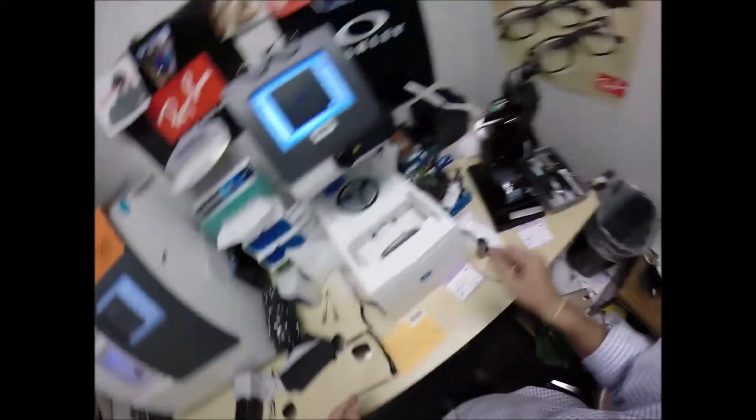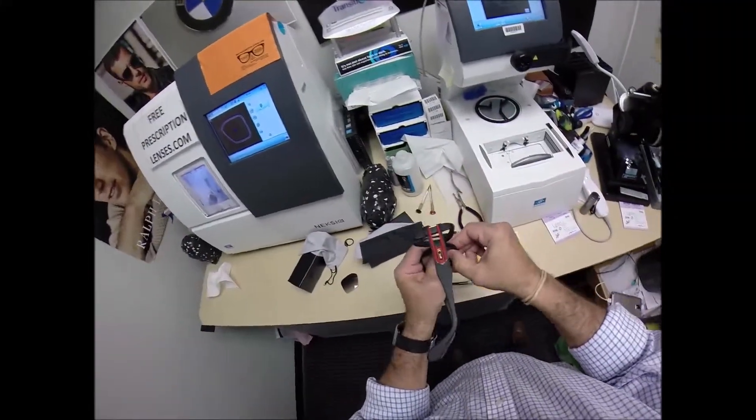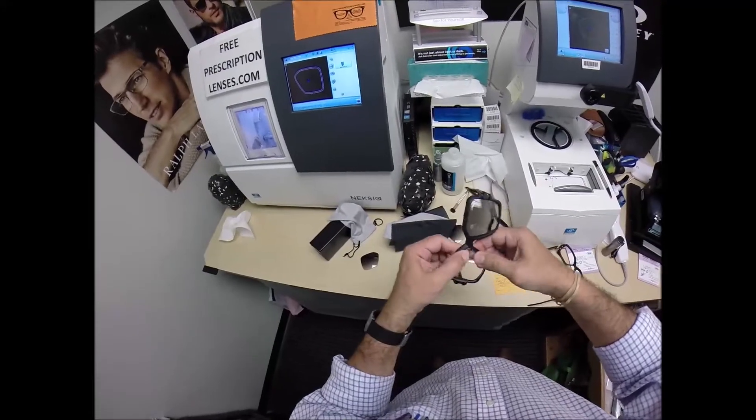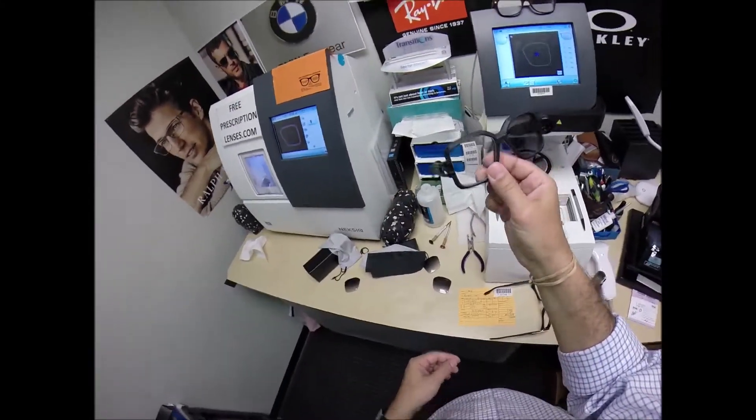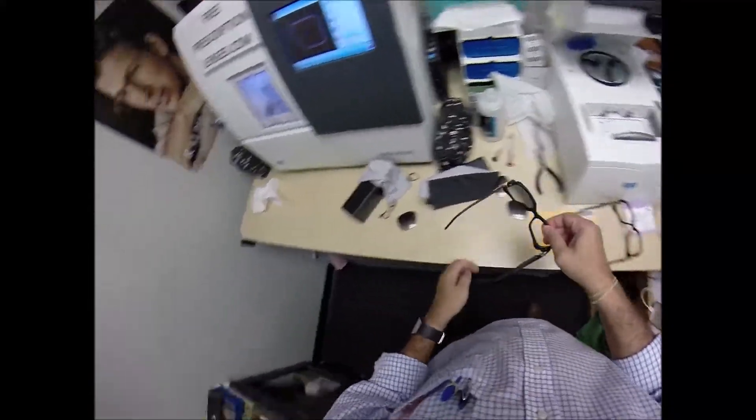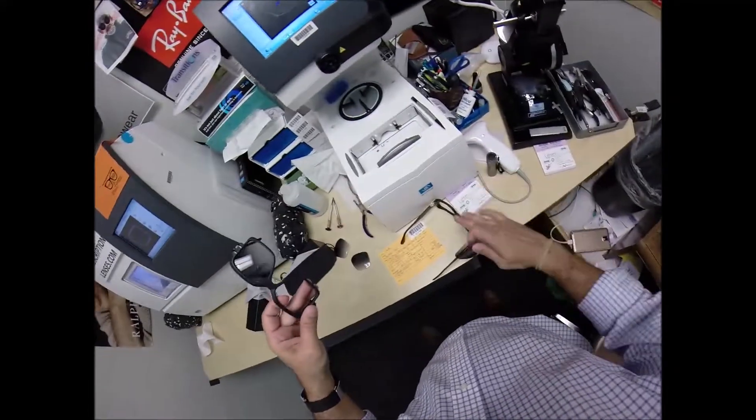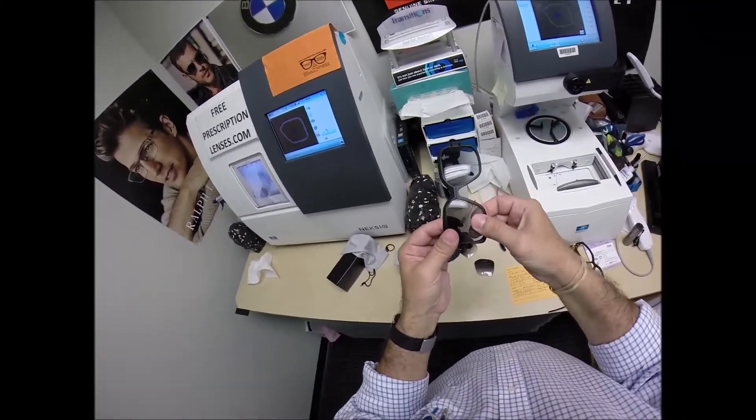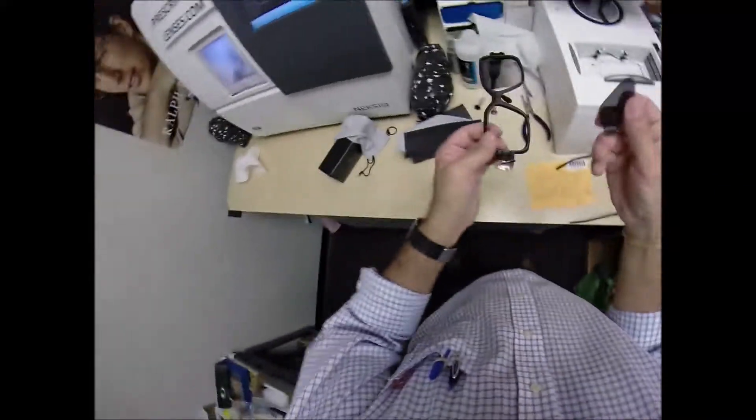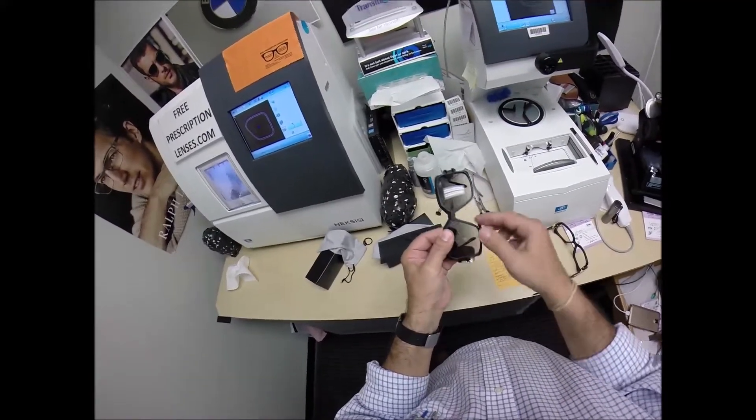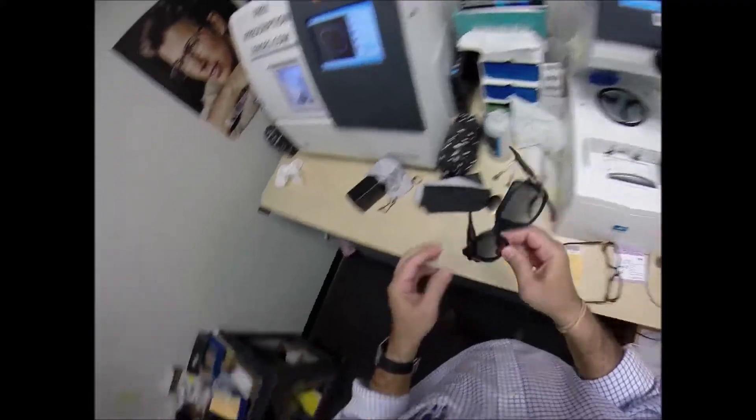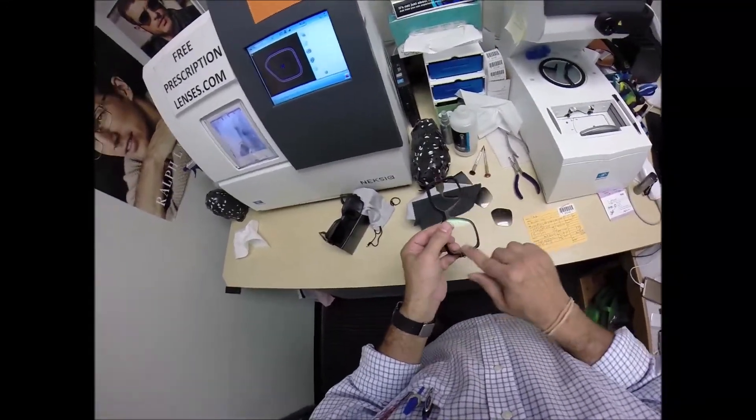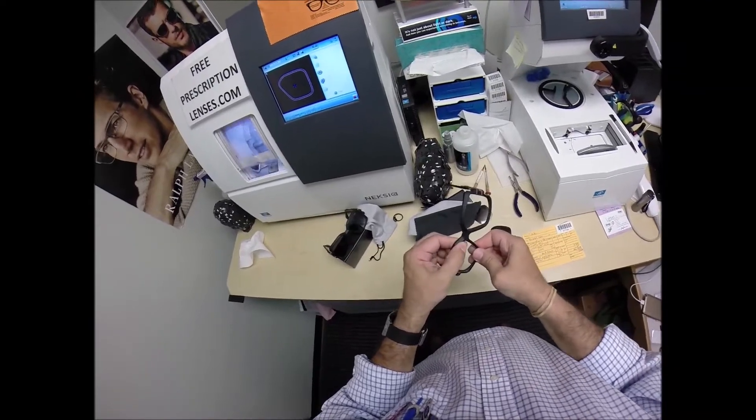So you can take, just as I should, I popped that one out, you can take the lens out of this frame, this color, tuck it in at the outside corner first using your thumbs, press down at the nose, it snaps right in. So now you've got your prescription lenses in this frame. We take that out. And again, you're going to have your polarized lenses that you can put into this frame or this frame once they're cut, since they are the same size. The only difference is the color. Let me do that again. So you tuck the lens in. I have the side I'm working on closest to me, elbows touching my side, arms bent at a right angle. Tuck the lens in at the outside corner first using your thumbs, press down at the nose, and then right there, it snaps right in.